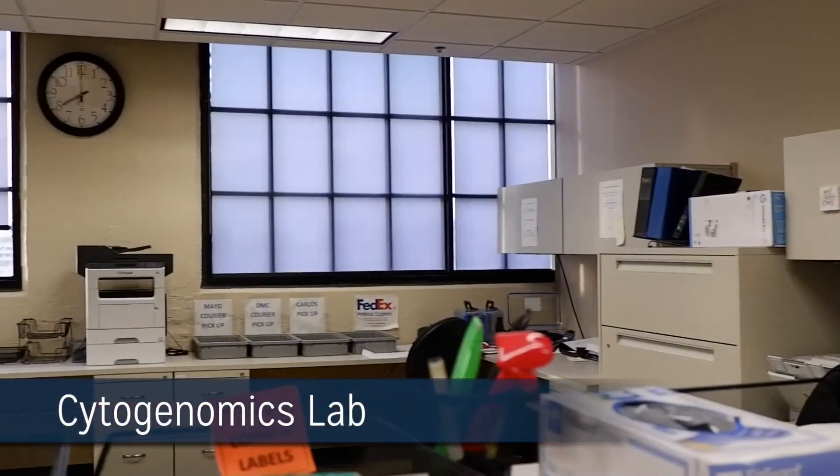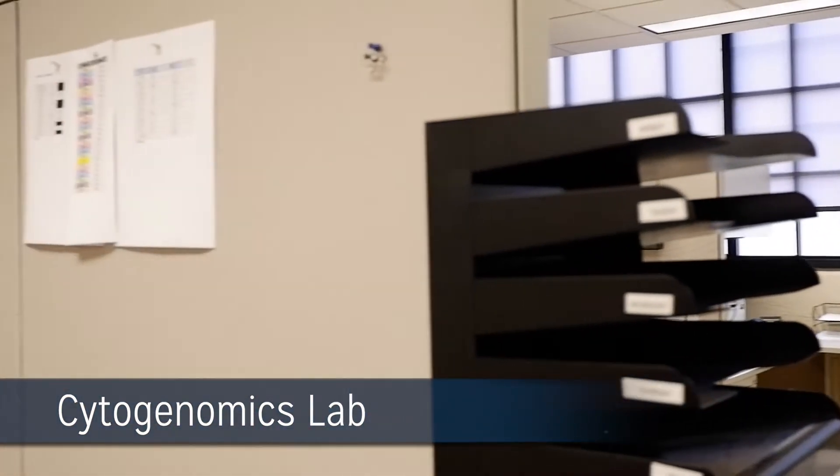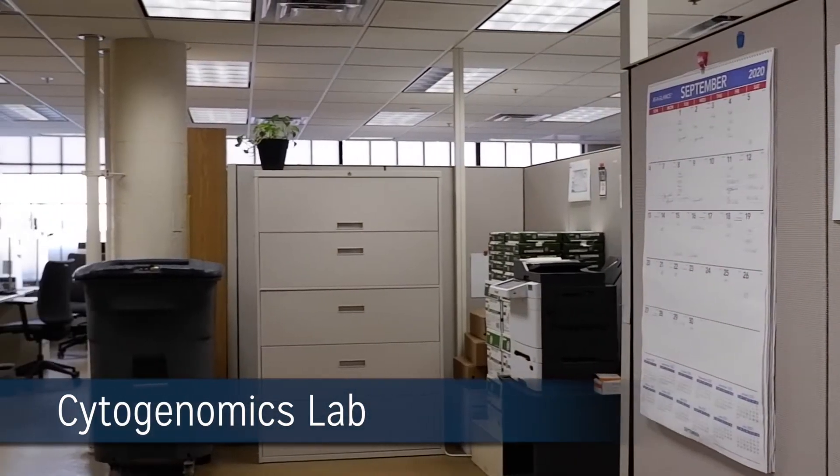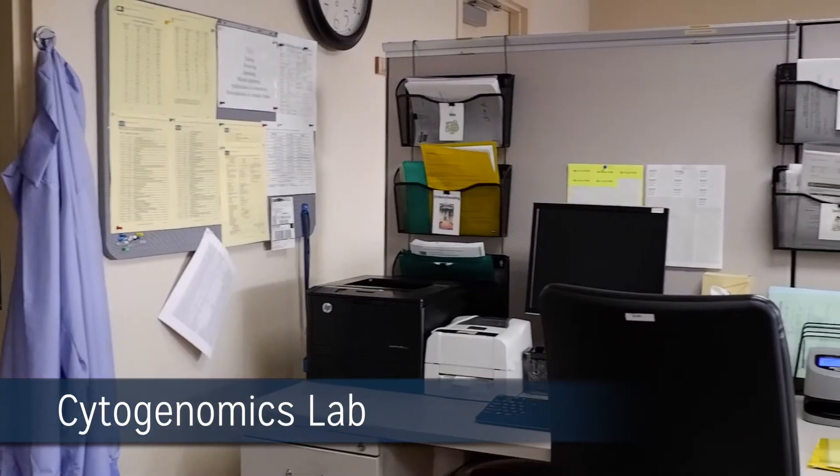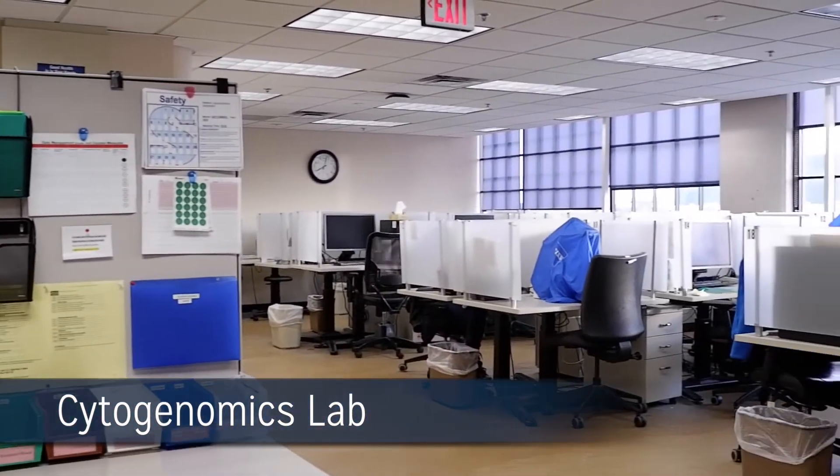The Cytogenomics Laboratory is located 1.6 miles from Henry Ford Hospital within the Tech Town Building. The cytogenomics laboratory is situated on the fourth floor with ample space for wet laboratory duties and quiet space with cubicles equipped with computer workstations for analysis and interpretation.